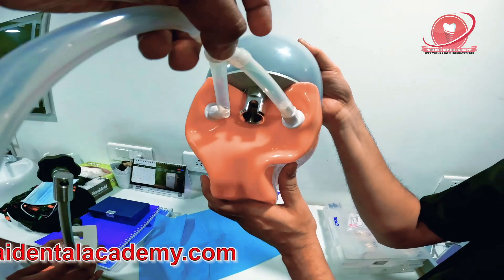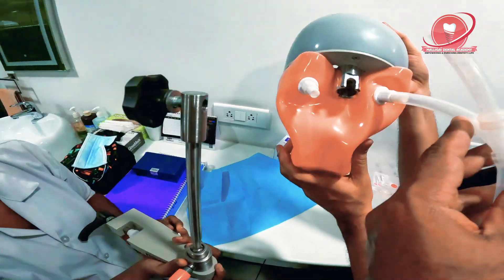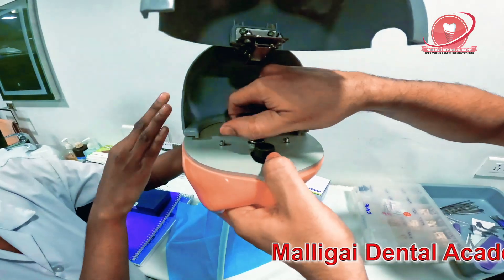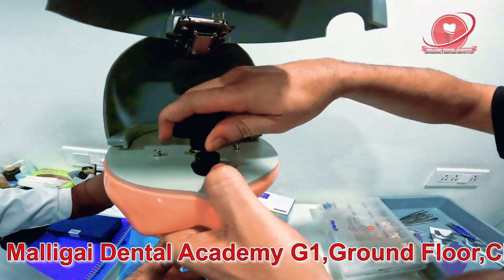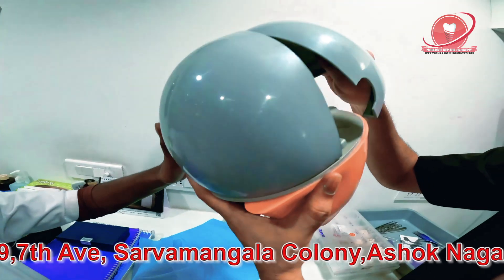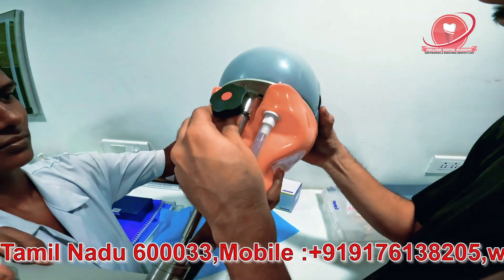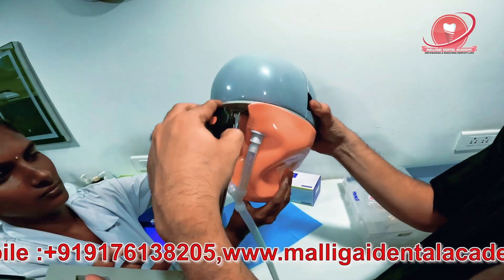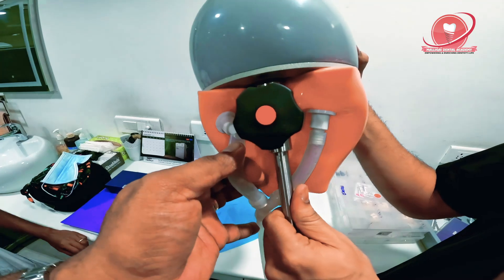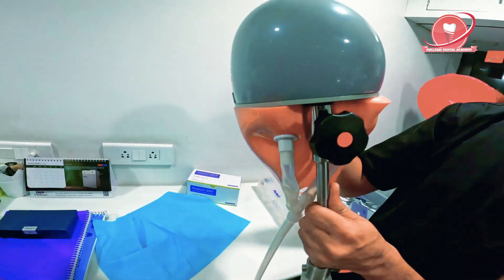One another mistake is that one of my assistants just fixed it on the chair like this, so the water can get compressed and come out. So now fix this, then tighten this screw over the black one — the big one — so that the thing doesn't bobble. Then tighten it up and close it. Just push this inside. Yes, we have fixed it — tightening it. Just put this back. Good, just a simple push. That's it — now your thing is ready.